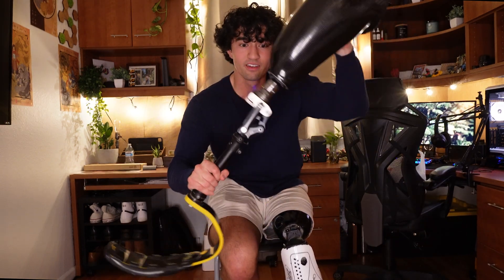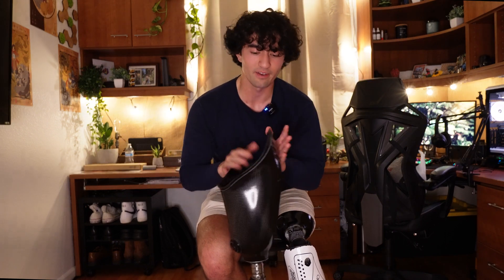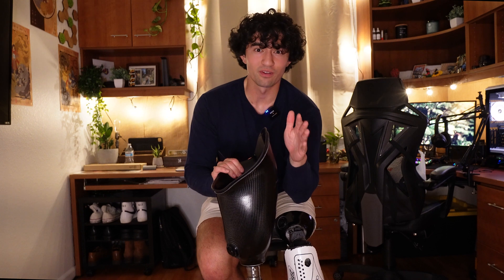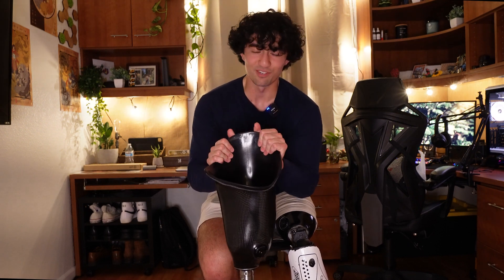One thing I love about the Plie was the running factor — you could attach a running blade to it if needed, or just run without one. The third leg I got was the running blade, which has a mechanical knee. Your prosthetic has to be a certain height because of the spring — every time you bounce, you lean toward that edge. Running blades are not covered by health insurance whatsoever, so this cost $35,000 straight out of pocket, which I think is ridiculous.